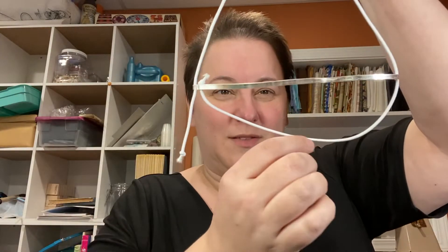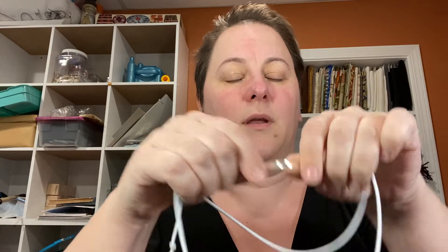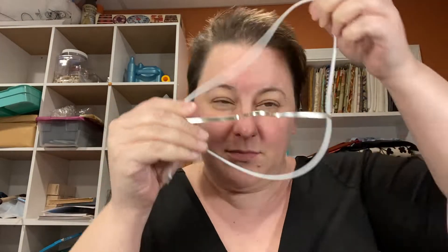So this is the frame when it's all complete. What you do is you're gonna need to adjust this curve based upon your profile in this direction. I'm just gonna bend this one and fit it to my face. Obviously you can do a more detailed job of this on your own, but this is pretty close. You could probably put a little piece of weather stripping foam on this area just to make it a little bit softer up against the face and to help with the seal.